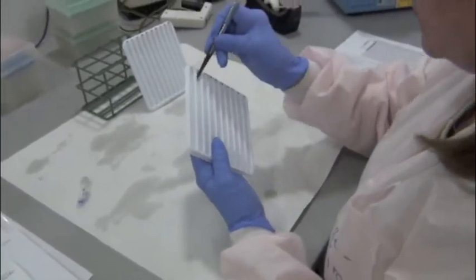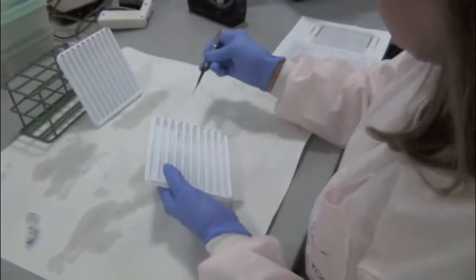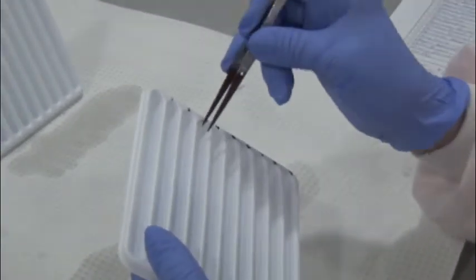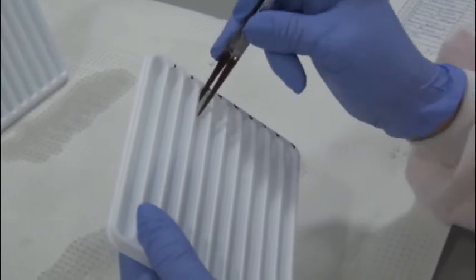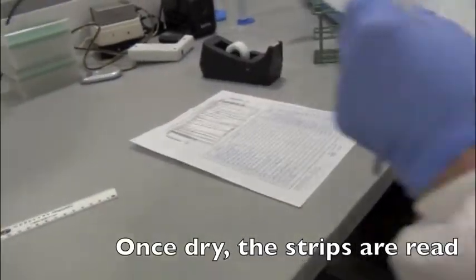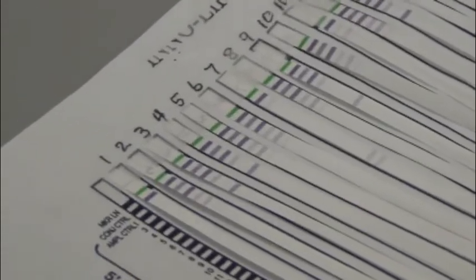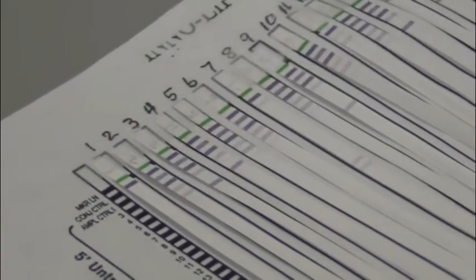Take these off and set some of these on the strip to dry. Okay, the negative control has the conjugate control, so we know that the assay was valid, and it is negative, as it should be. It just has the conjugate control and nothing else.